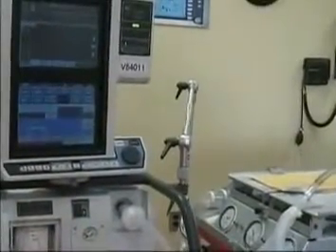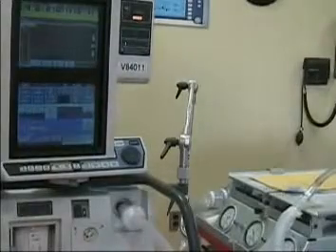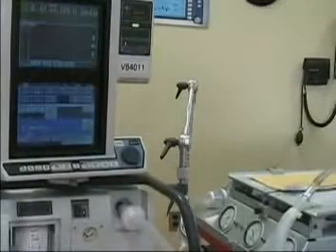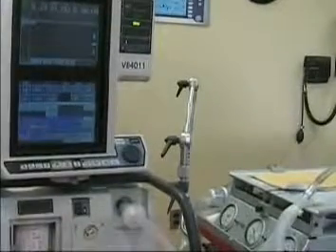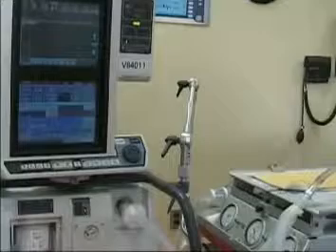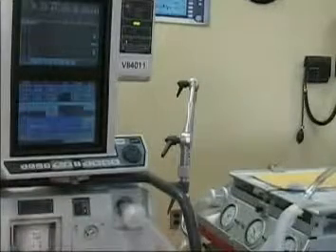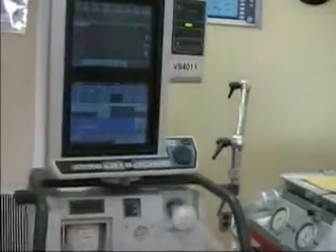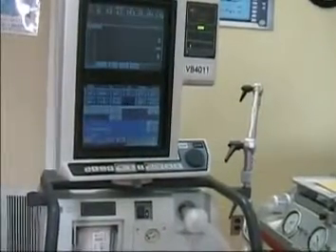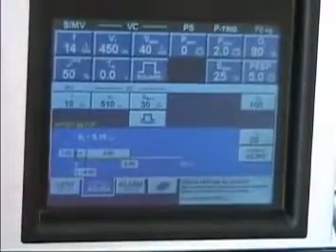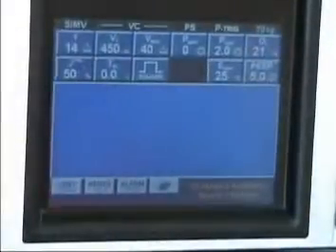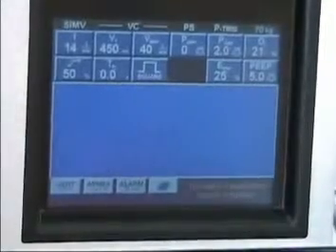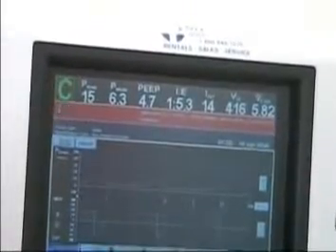The ventilator will start breathing for the patient, sensing that it is connected to the patient. Now we're not completed with the setup yet. We need to go in to the alarm modes. It's best to let the machine cycle for a little bit. We're getting an FiO2 alarm simply because we're not on oxygen.